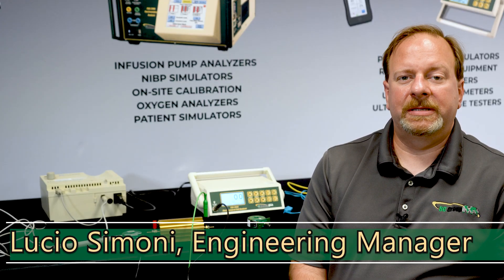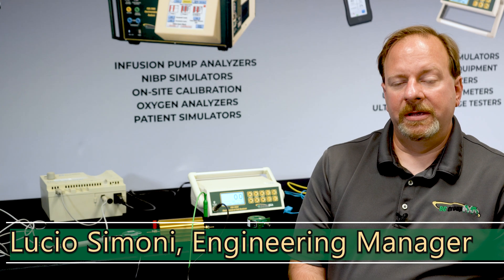In this segment we're going to demonstrate how to test a ground reference generator using the ESU 2050.